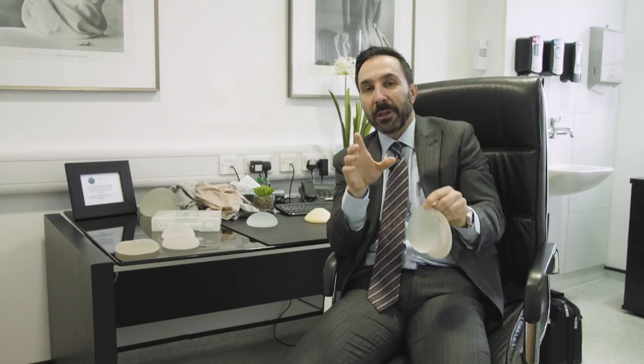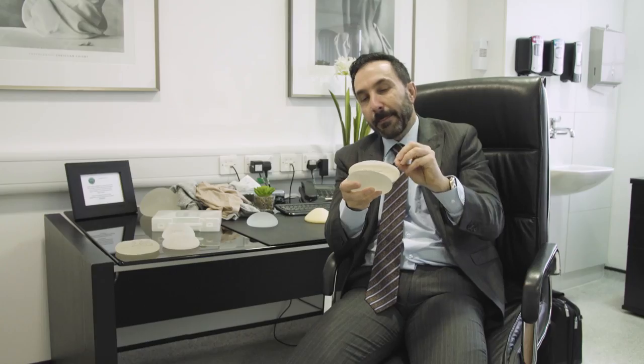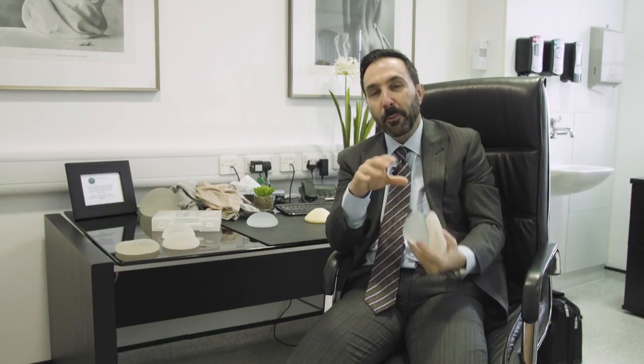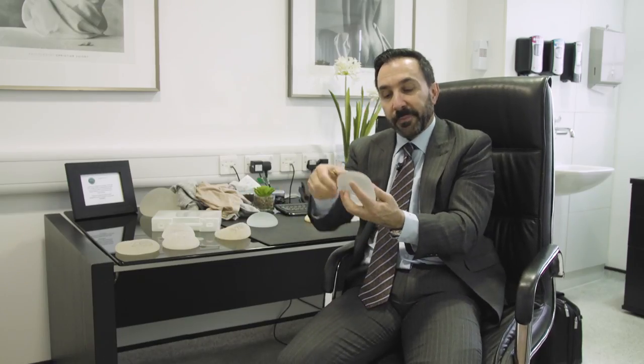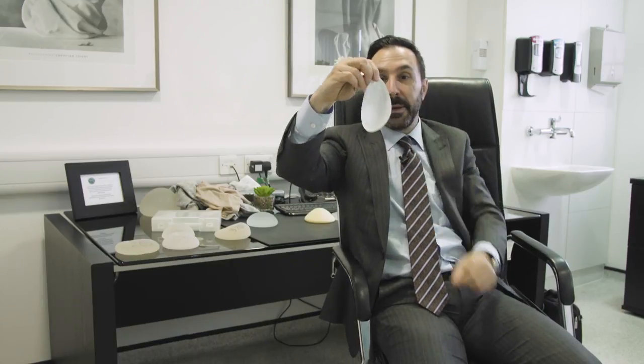One other issue which many people forget about is this: when we're actually creating a pocket to install these implants, the implants themselves are not screwed in or nailed in in any way. We make a very specific pocket for them and lay the implant in. This means the implant itself can actually move around within the pocket. In the case of a round implant, if it rotates a bit it doesn't really matter so much, because gravity brings it back down and you still get the same effect — if I turn this upside down you still get the same thing.